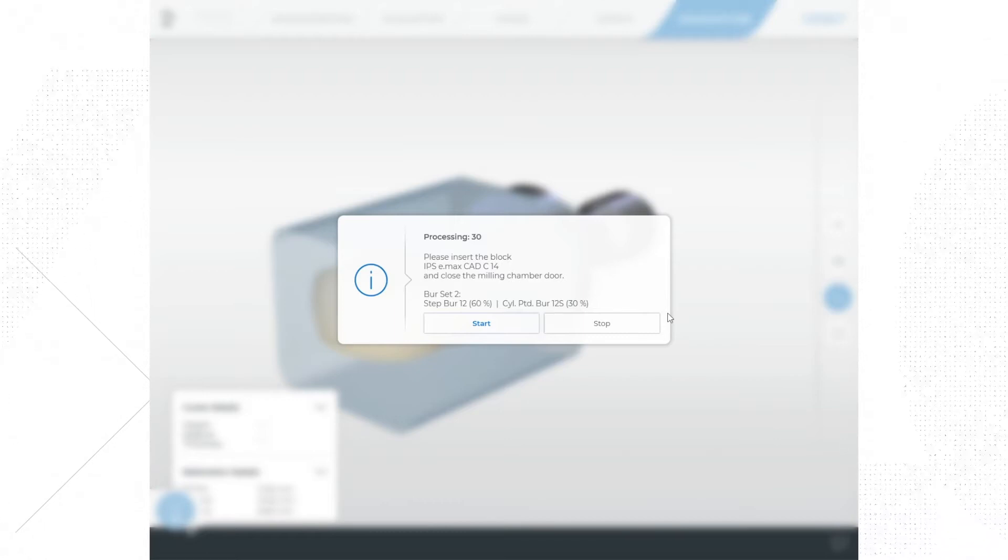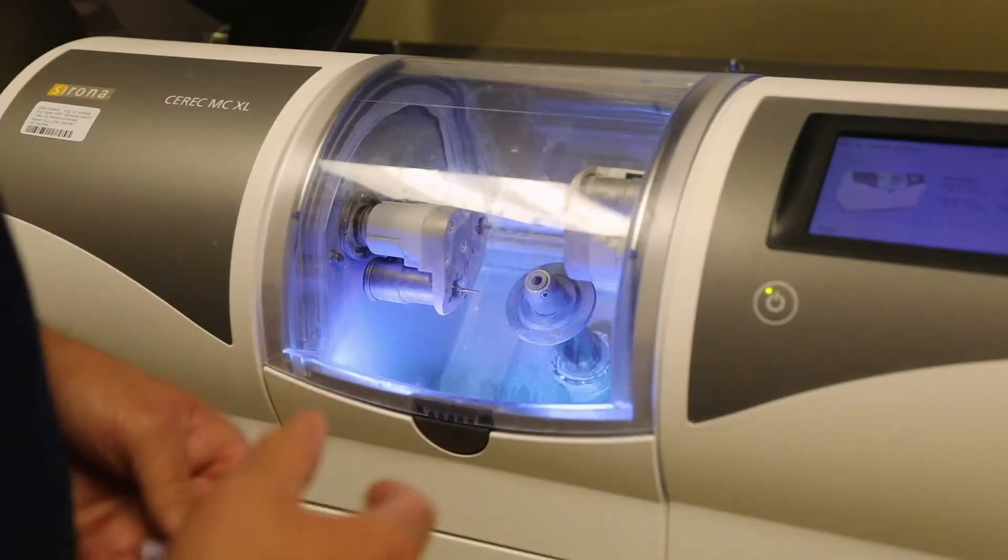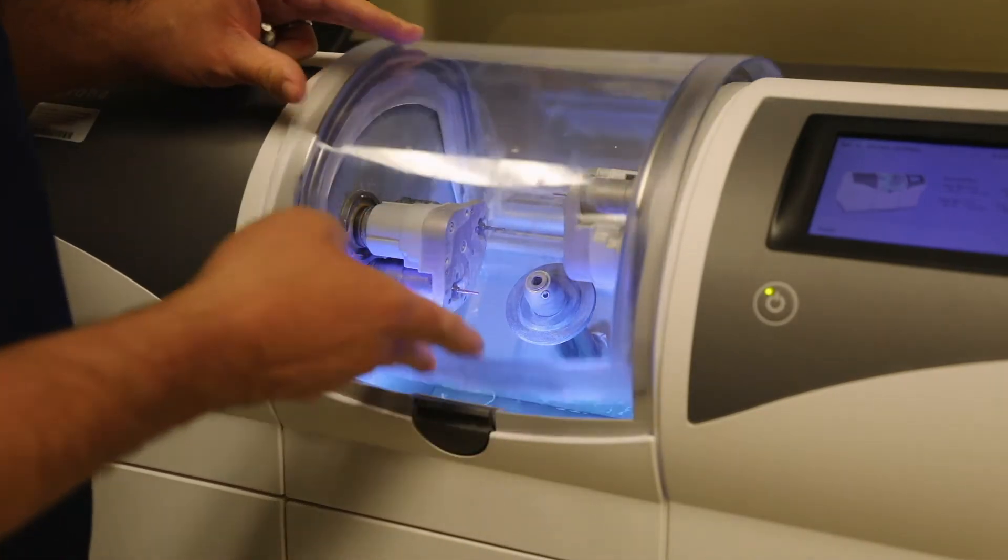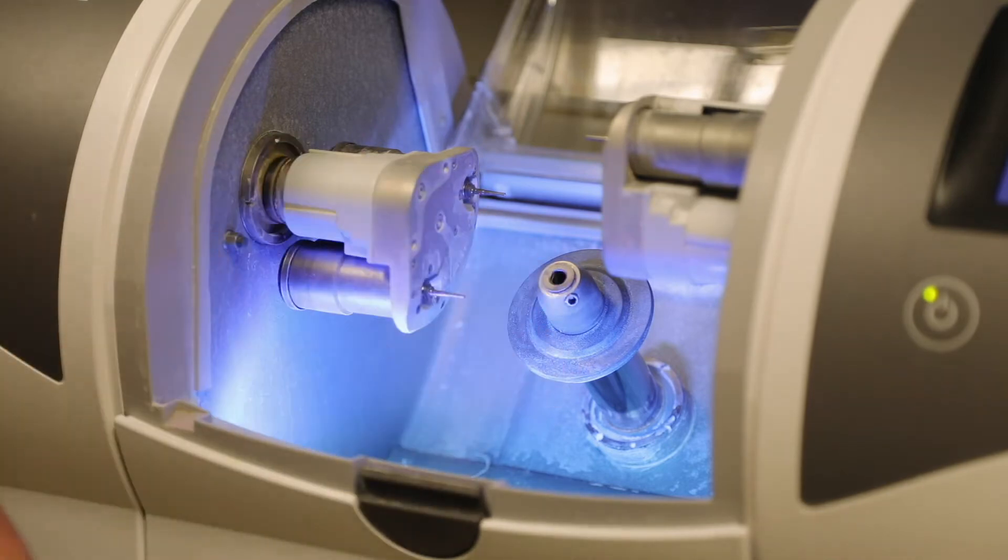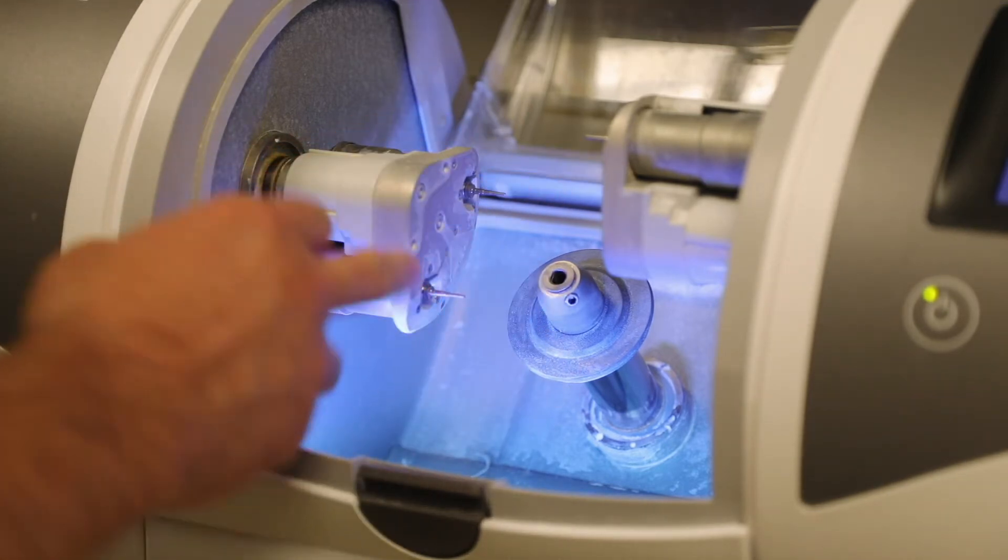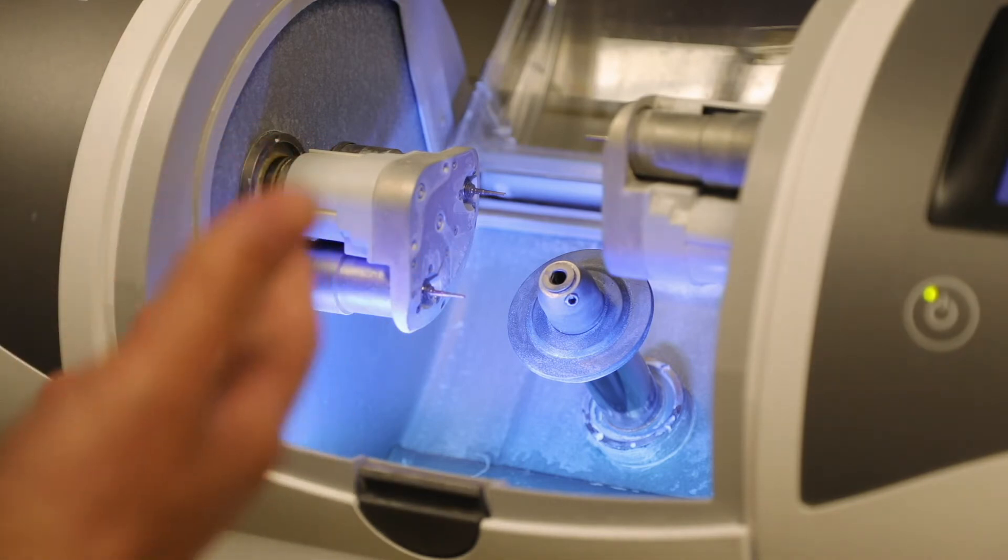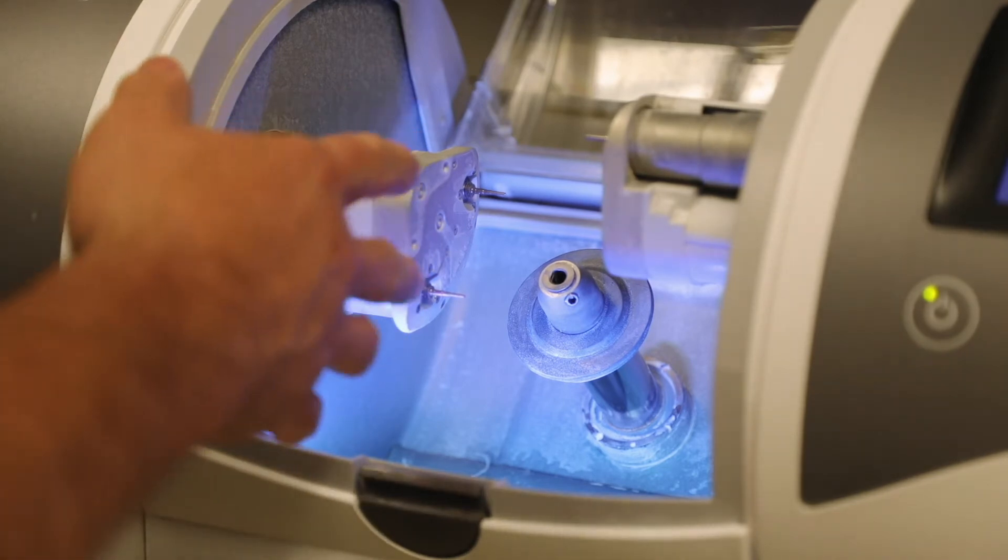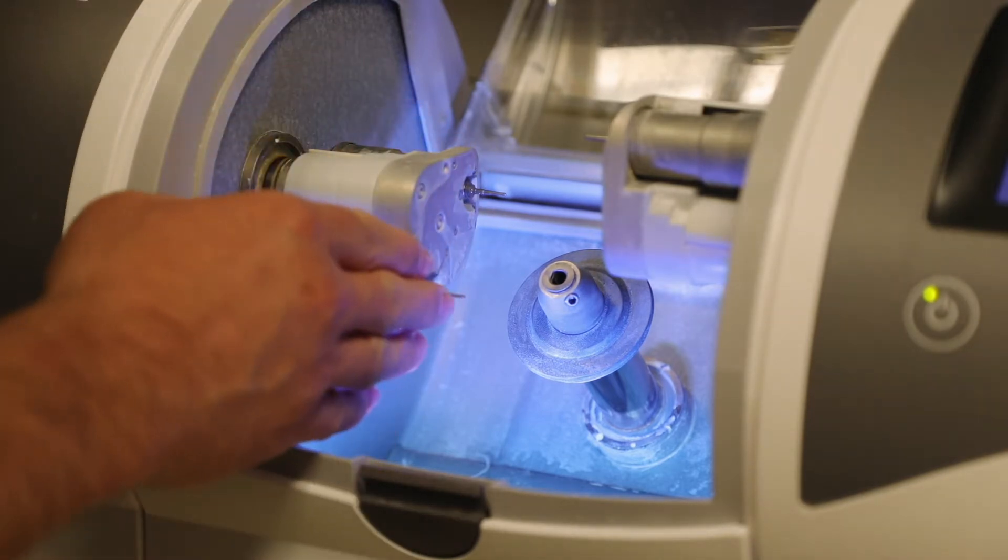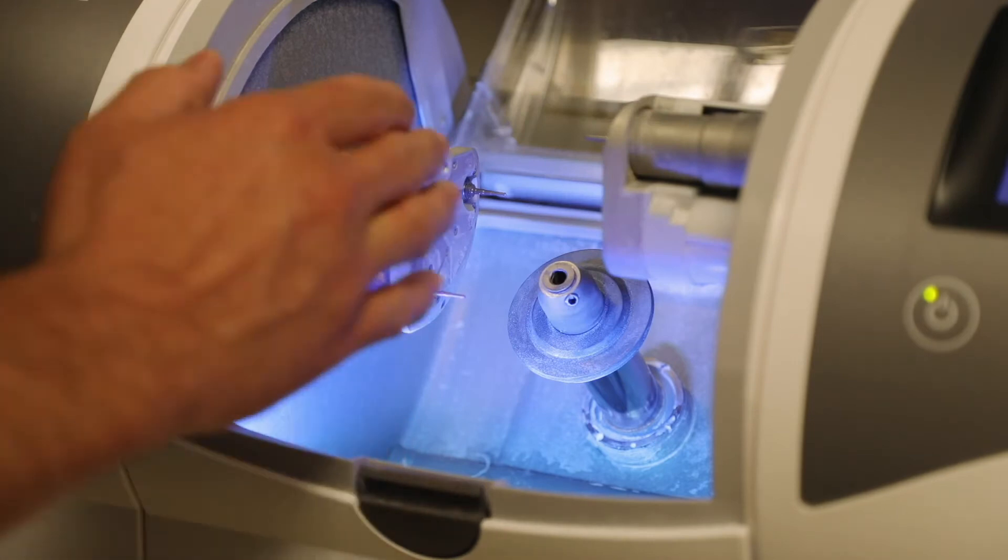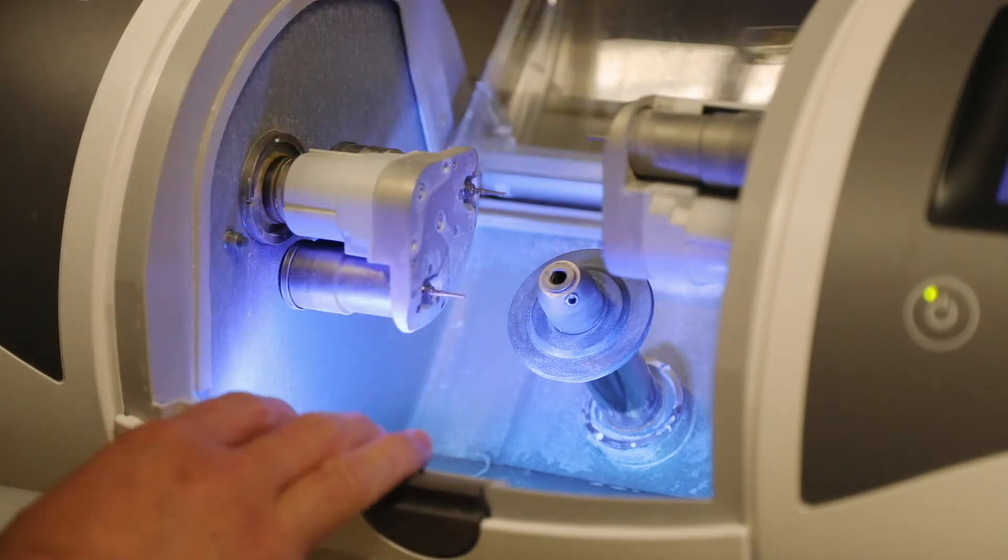All right, so now we're at the mill and from this point we have to insert the block in, so we need to open up the lid here. So as we look in here you're going to see that there's no block in there currently. You're going to see two burrs on each side, so that means that we're currently running a four motor system. So we have two burr sets, so a burr set constitutes one burr on this side and one burr on this side, so we have two burr sets total in this machine.